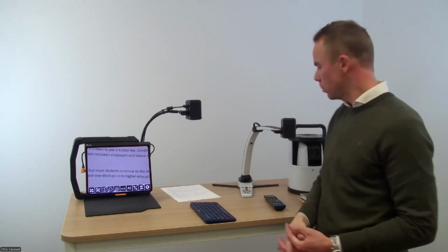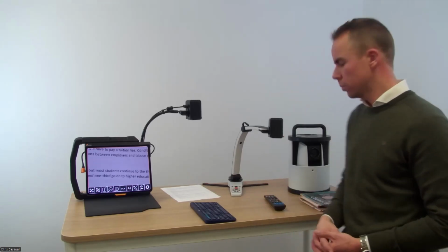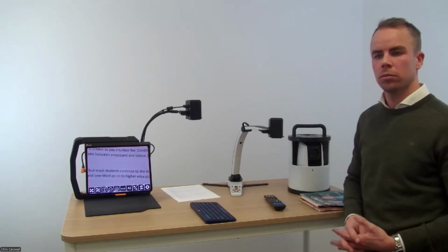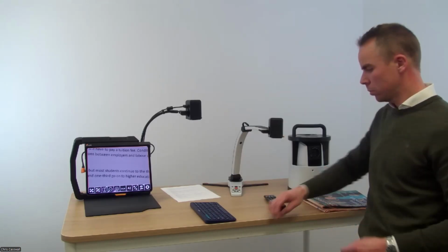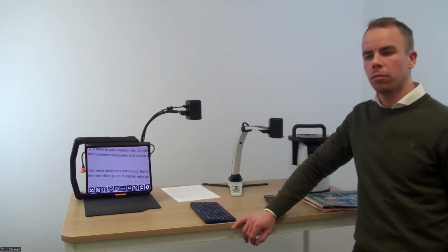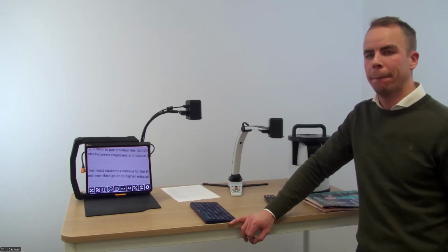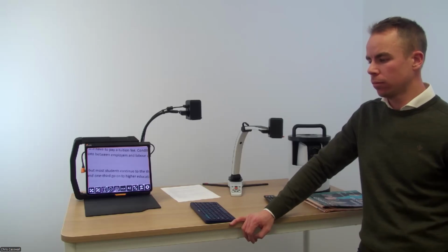She said, I think I'm asking, can it be used with the camera as well? Example, what color? Okay. So she's asking, can it recognize a color? So if it scans in a chart, would it say that the 300% is a green bar and the 200% is a yellow bar? So will it recognize color on the chart when it does OCR?